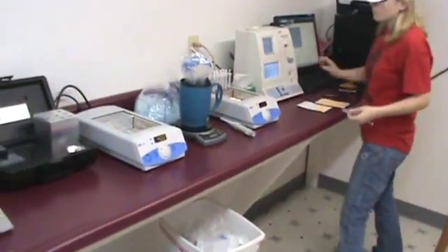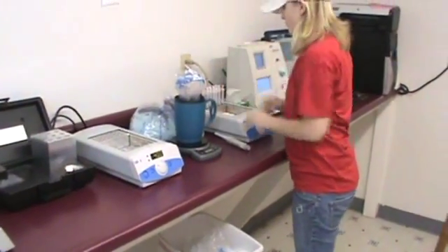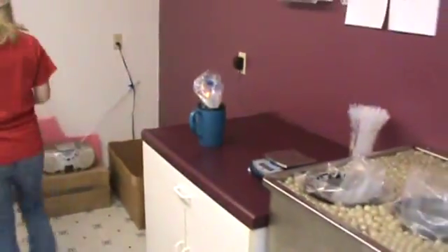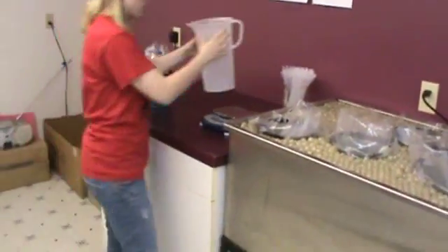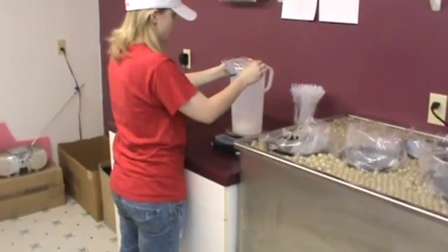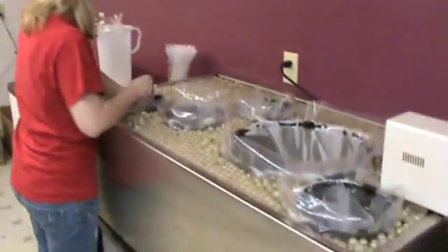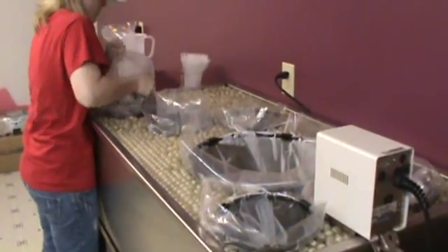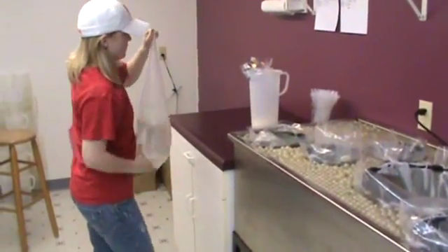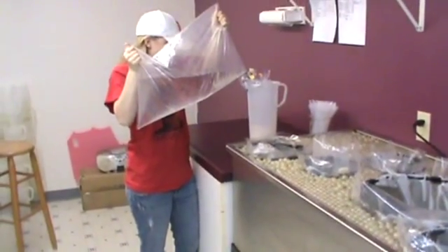She will now take the cup with the bag of semen over to the extender counter and pour in the extender necessary to make the number of doses the computer has told us to make. The extender we use here at Prairie State is called Preserve XLT, which is a great extender for long-term storage. On average, if you keep it at the right temperature, 70 to 80% of the boars here at Prairie State are going to last 7 to 10 days, so it's very important to keep it in that 60 to 65 degree window. This water bath is heated to 37.3 degrees Celsius, and you can see Marissa pulling out a big bag of extender mixed up here this morning and pouring it into the tube.